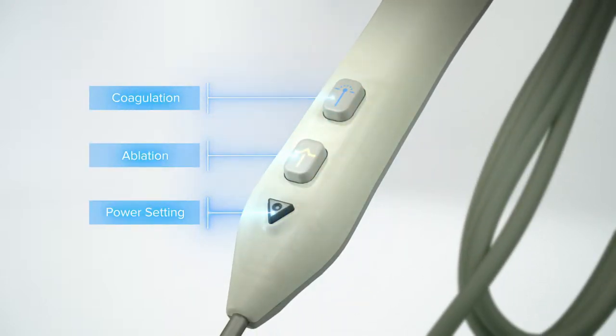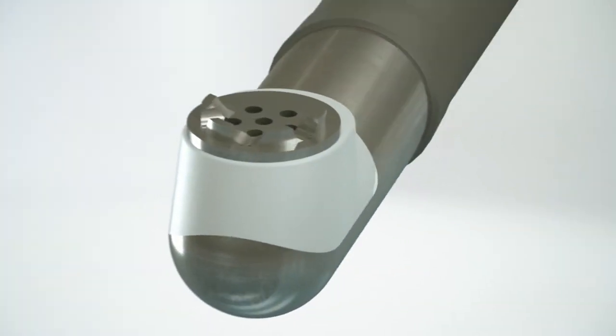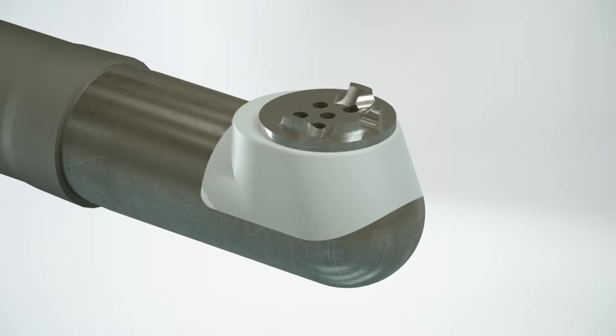The Synergy RF Probe has an ergonomically designed handle with easy-to-push buttons and a specifically designed probe tip to allow surgeons to reach and remove tissue in a variety of arthroscopic procedures.